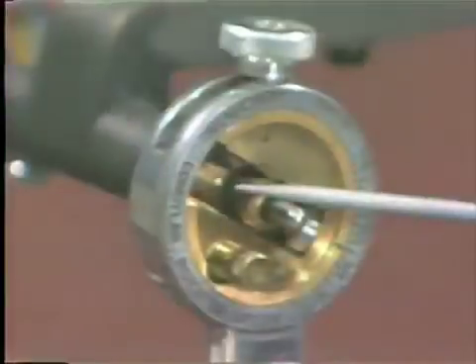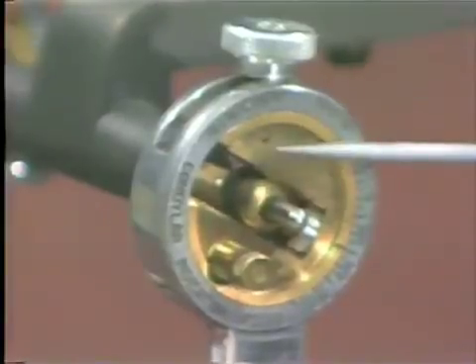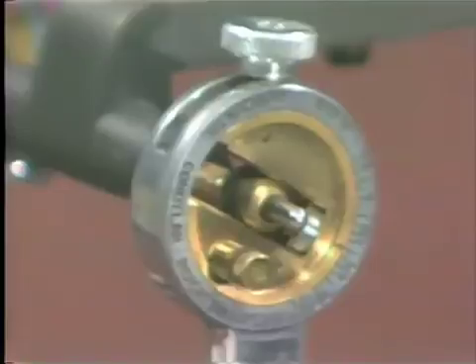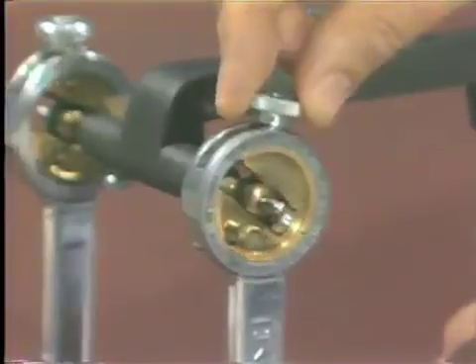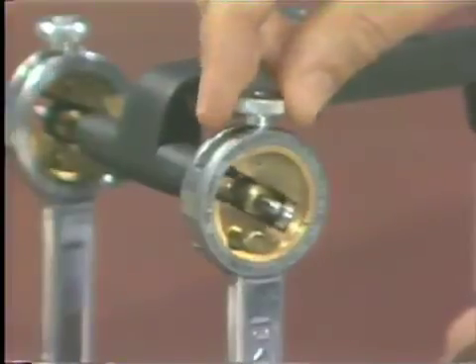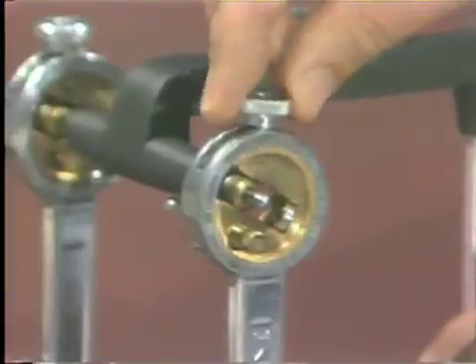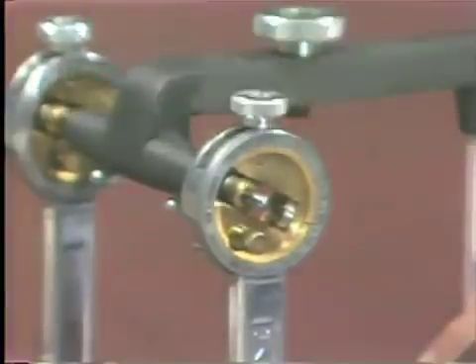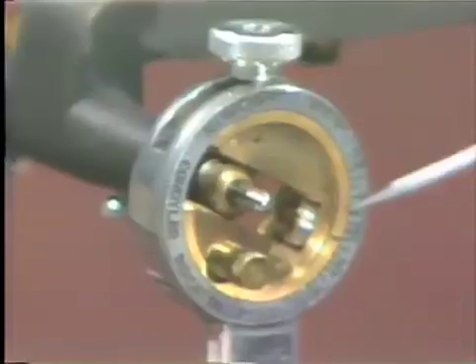This element of the articulator is called the condylar element. As you can see by the writing inscribed on this element, it is called the horizontal condylar guidance. By loosening this bolt and nut on the top part of the articulator, it allows us to move this element. When the patient's protrusive record is recorded and placed on the articulator, this part moves in the posterior vicinity and this element is rotated until the record is interdigitated. It is then tightened and one may now read the actual mechanical equivalent.